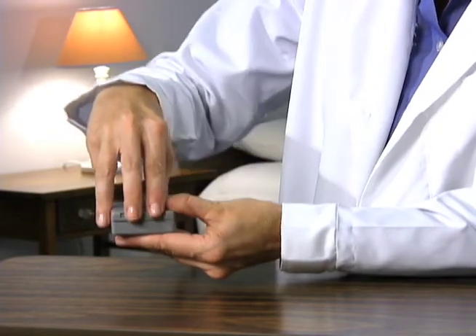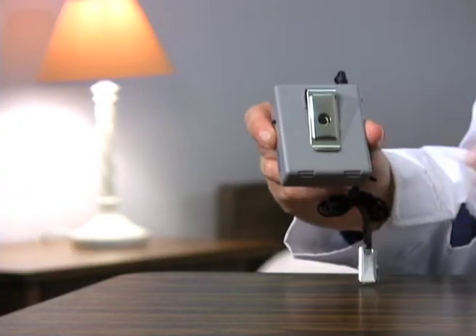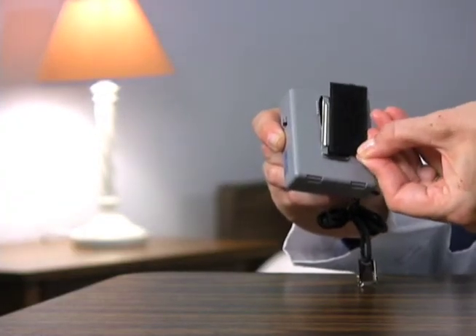To insert the battery, depress the two clips located on the bottom of the alarm and separate the top and bottom pieces. For mounting the alarm, use either the attached clip on the back or the adhesive backed hook and loop strip.